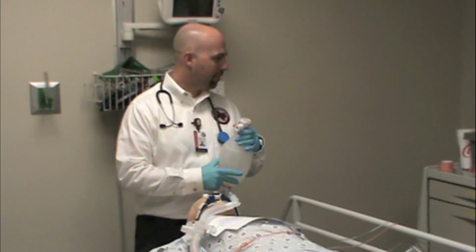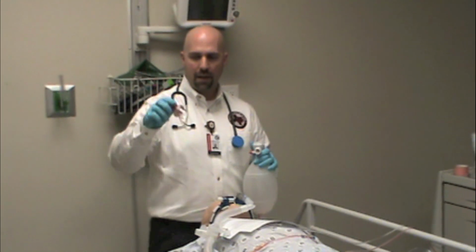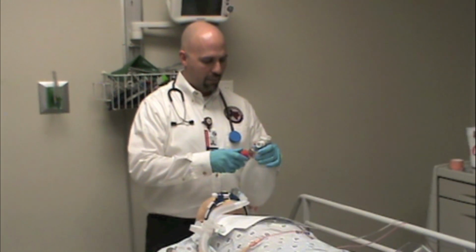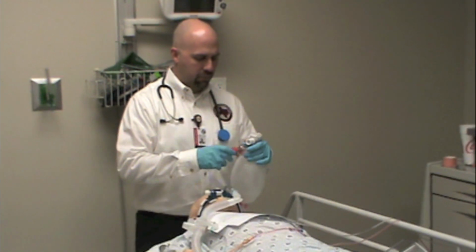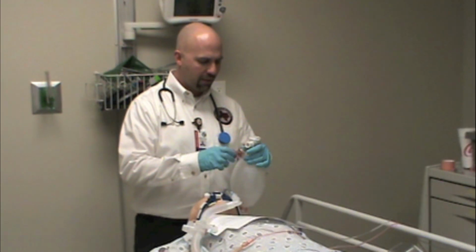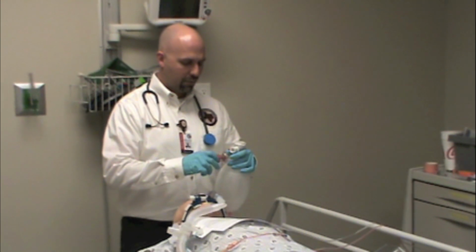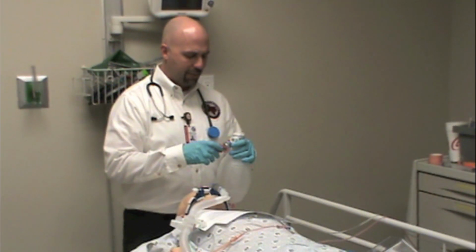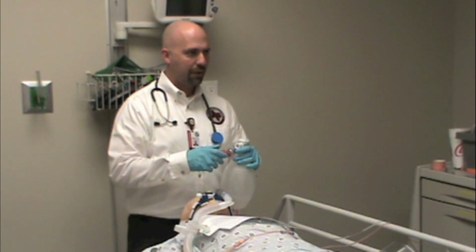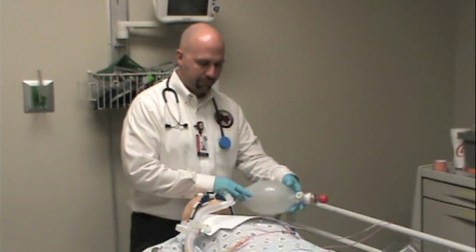So a standard bag valve mask usually will have a cap that will pop off the top and allow us to put a PEEP valve on, and we can measure that amount of PEEP by the coil tension on the spring. So for physiologically stable patients, we're going to have a PEEP of 5. If they have sick lungs, we'll sometimes dial up to a PEEP of about 10. If you exceed a PEEP of 10, I would make sure you're really, really carefully watching their blood pressure. But always have a PEEP valve available.